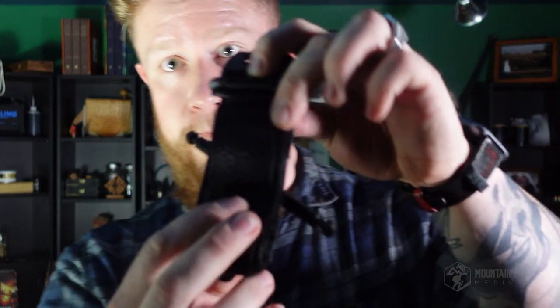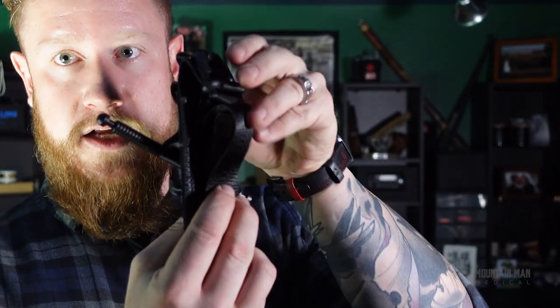Now we're going to let this buckle hang flat against it. Then we're going to take both the strap and the loop and just fold it in to the very bottom of the tourniquet. Then we're going to put one more fold so that it tucks in right underneath of the buckle — just like that. Hopefully you can see that, just right underneath of the buckle. Then you can take this windlass, make sure that you pull out a little bit of the slack so that you've got some slack to work with, and then fold this over on itself so that it lays nice and flat to the side, just like that.